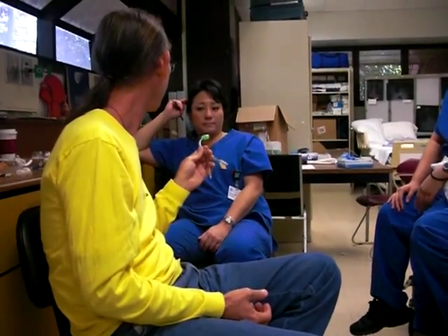It's just like the adult one, but it's littler, because they're littler. What is a pediatric, and what is a baby, and what is an adult? You guys took CPR, right? Use the CPR definition, the heart association definition. Eight years old is pediatric - that's the end of childhood. Nine years old gets treated like an adult. When is it a baby? Under a year.